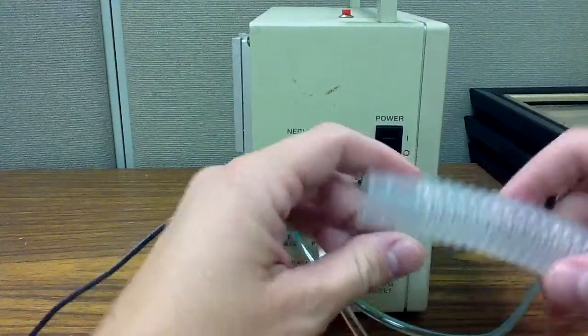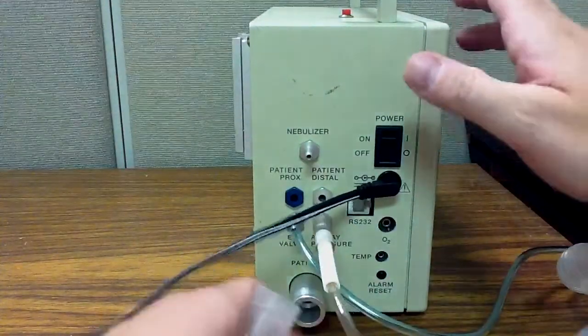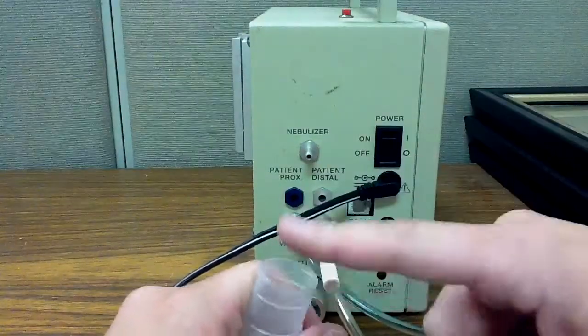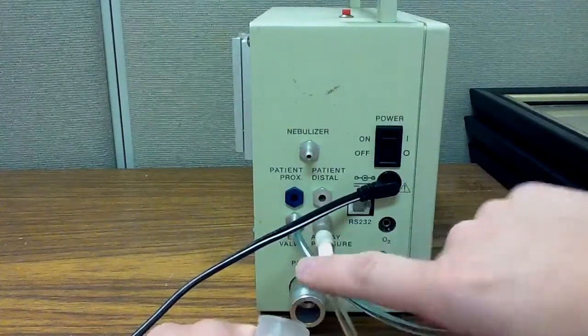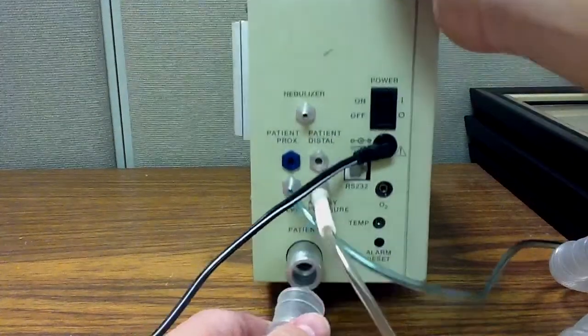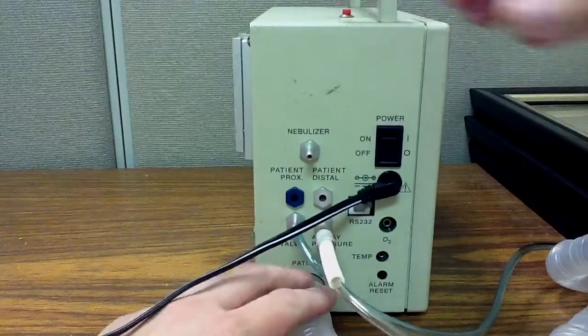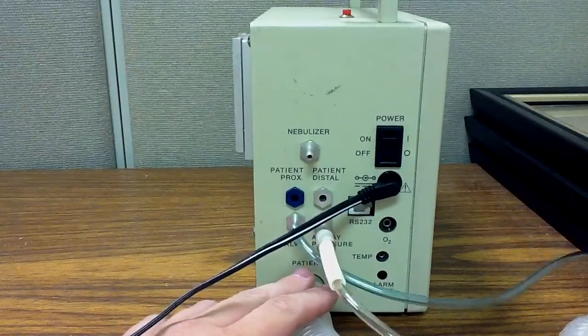So this is a ventilator circuit. Now, I don't actually have one for this demonstration, but I'd recommend a HEPA filter. I'd put a HEPA filter in between the ventilator and the patient to protect the ventilator and to protect the patient. So your ventilator circuit will attach here. Again, you're not using a HEPA filter, but I would definitely recommend a HEPA filter.